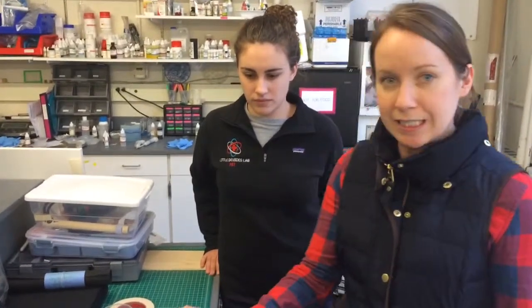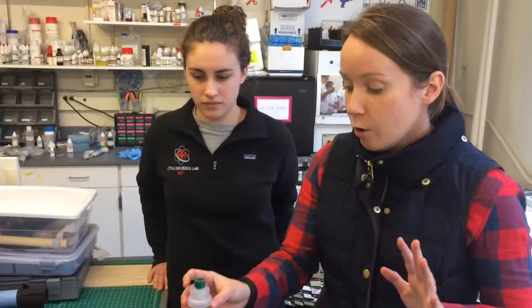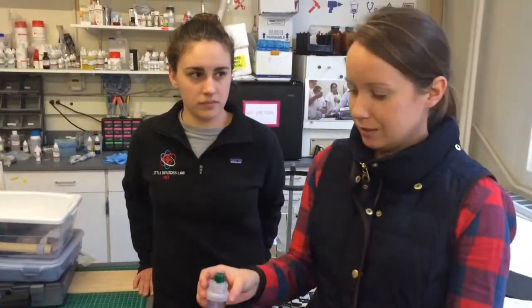Typically this is run off of an air compressor, which has a couple of fail points. If you're using it in a developing country, you could have the wrong voltage and it fails, or it could be clogged with dust and it fails. You'll see maintenance professionals spending loads of time trying to fix it, when actually what you need is just a different way to push air through this little cartridge.